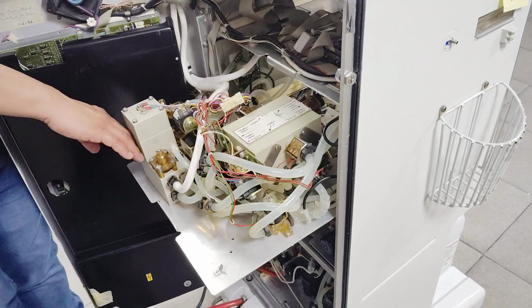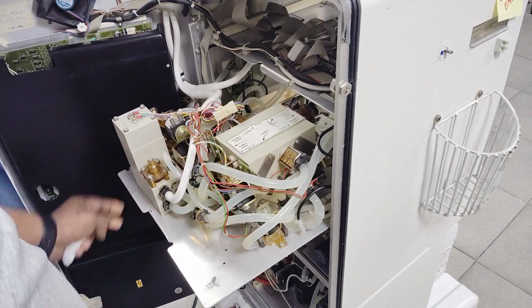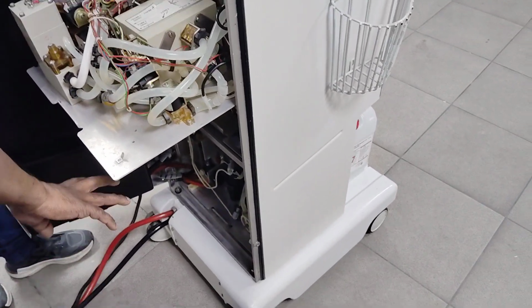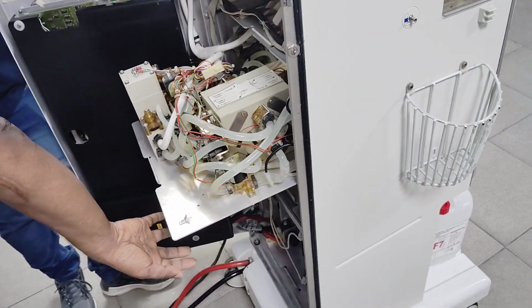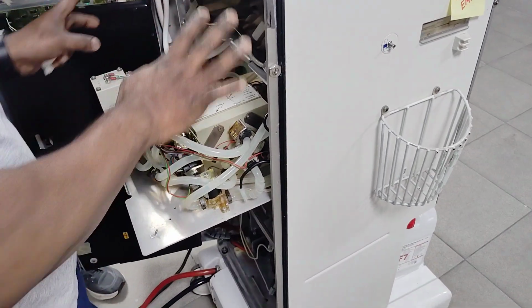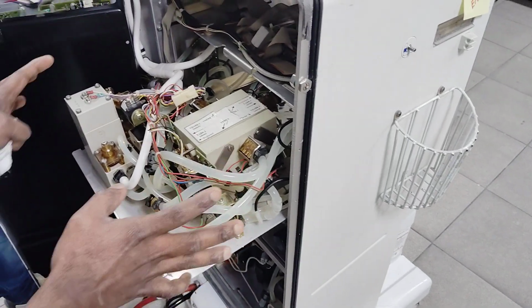So what is the meaning of this? Air separator. It's called air separator. Once the air was separated, it will go to the degassing. And then the degassing will go through that one, and through the other side it will try to give the good water without air. It's trying to prepare the water without air and push it inside the machine wherever it's needed.